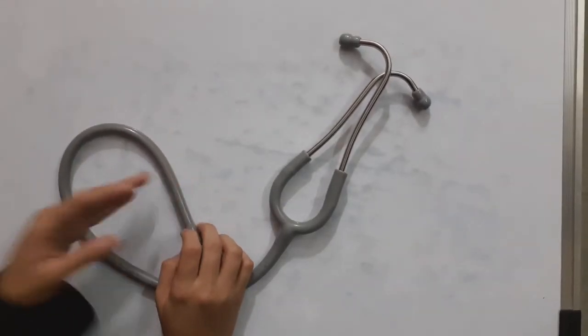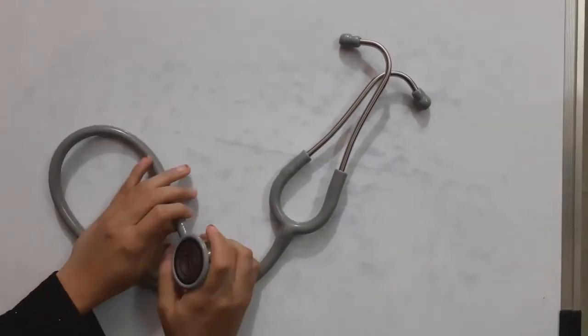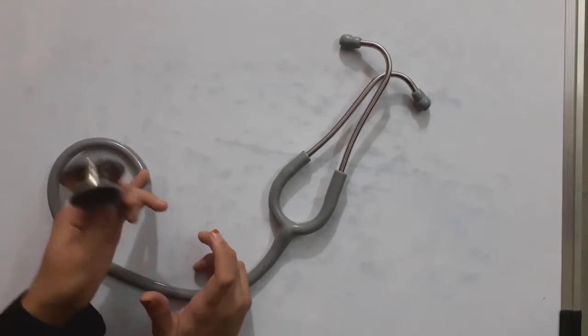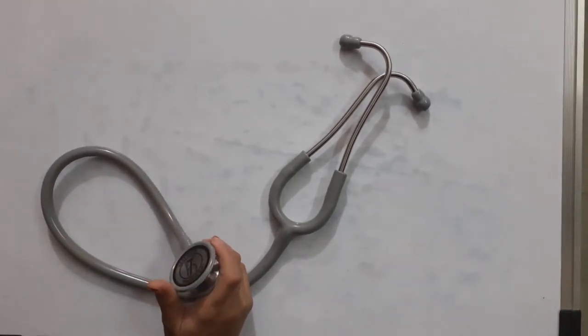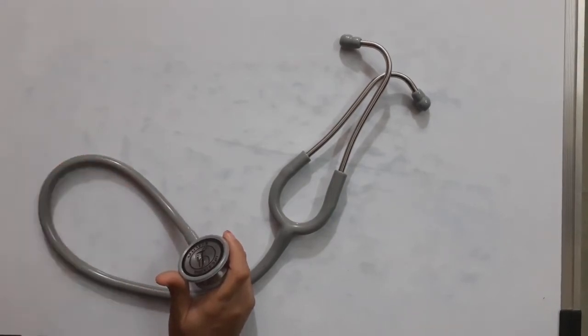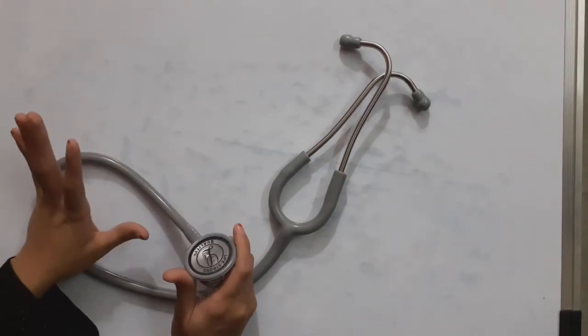Assalamualaikum viewers, today's video is about the stethoscope. This is a device for auscultation of sounds produced by the heart, lungs, intestines, as well as blood flow through arteries and veins.